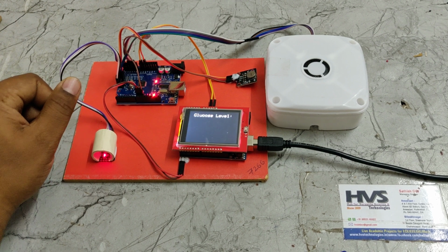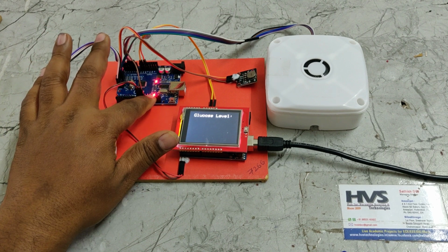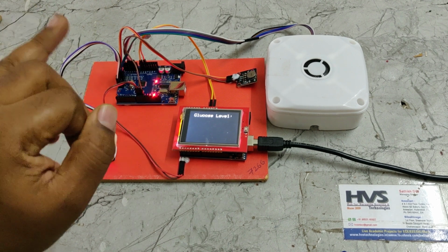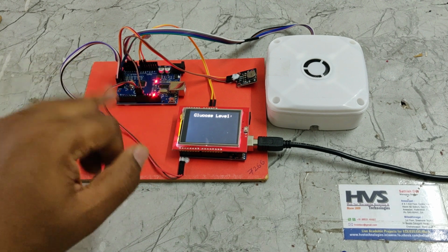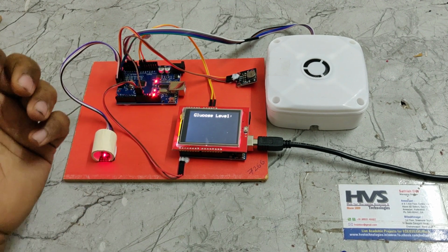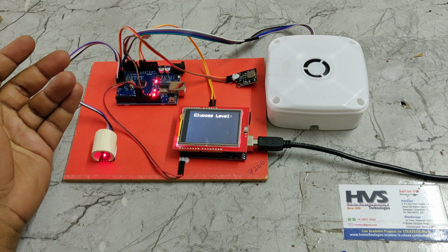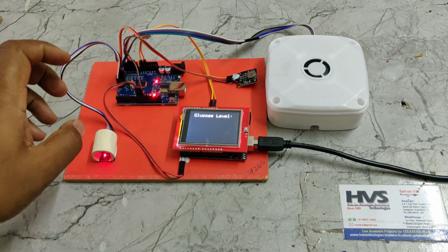Once it is initialized successfully, we can see a light continuously blinking on this Uno board, which is the master board. The light blinking continuously means it is monitoring the data. Once you place the finger, it has to stop blinking, then it is analyzing. If it keeps on blinking, that is an indication that it is unable to get readings from your finger, perhaps due to a finger skin problem, so the system won't get proper readings to analyze the glucose levels.